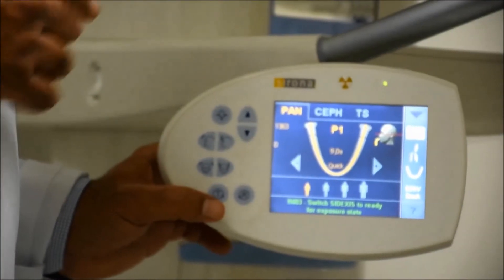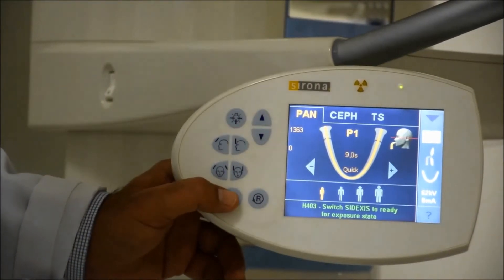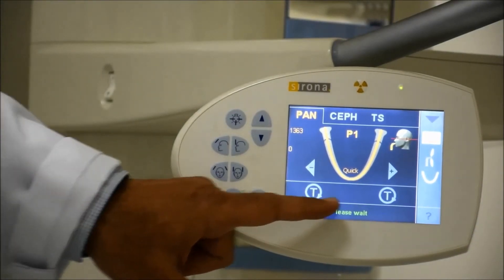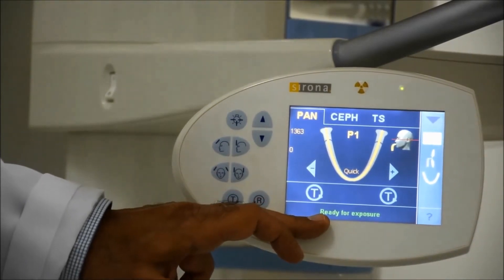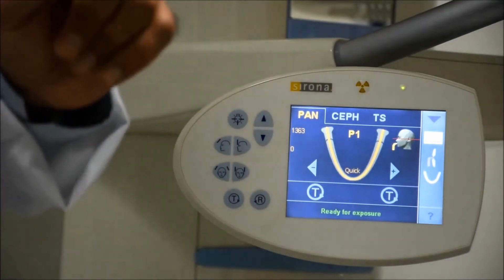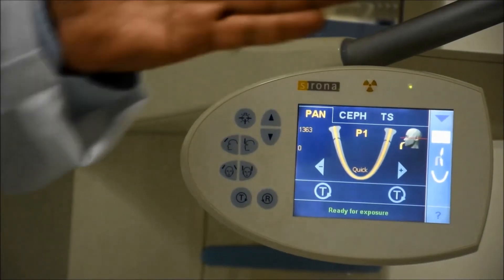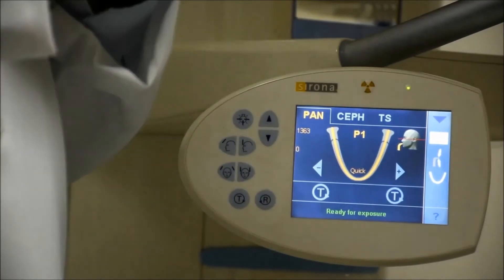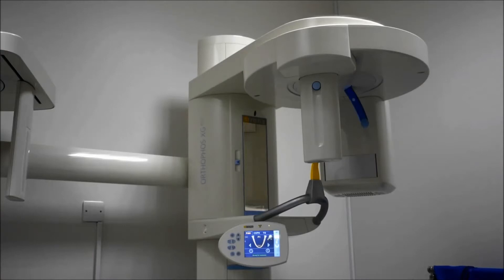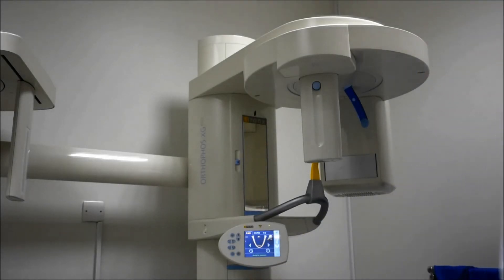When you click T — which is just next to the R button — you will see a screen come up showing a T letter with a circle, and it will tell you that it is ready for exposure. T stands for test mode, in which there is no real x-ray production. It is just the typical semi-arc rotation movement of the x-ray machine. To activate test mode, click T first and then trigger the exposure to see how the machine rotates.